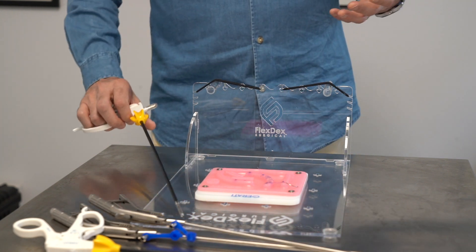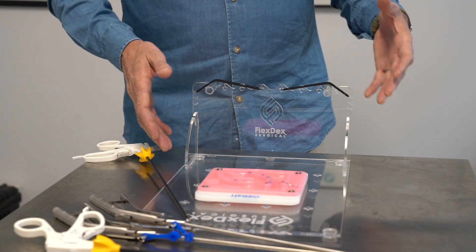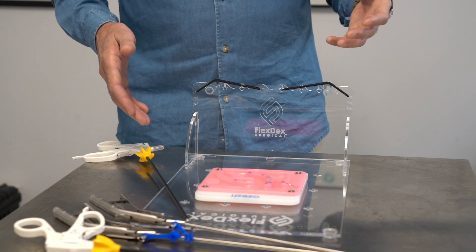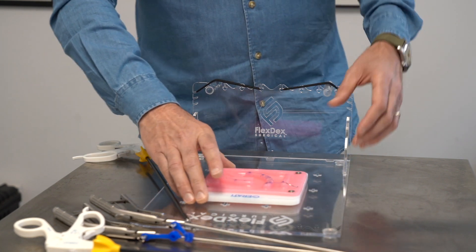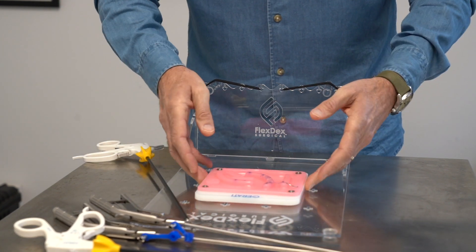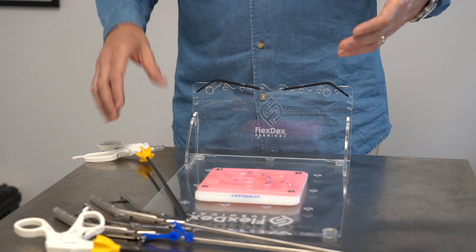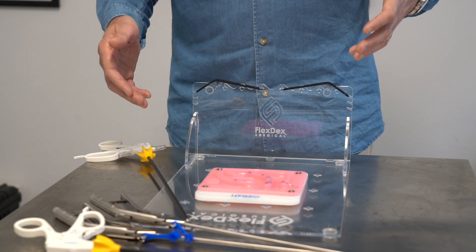Prior to your first clinical case you should spend a lot of time practicing on a laparoscopic trainer. This one costs about $60 and there are some that cost up to maybe $500. The ones that cost $500 often include multiple different training platforms. Also they come with a learner's set of surgical instruments so really it's all you need to get some skill in laparoscopic surgery.